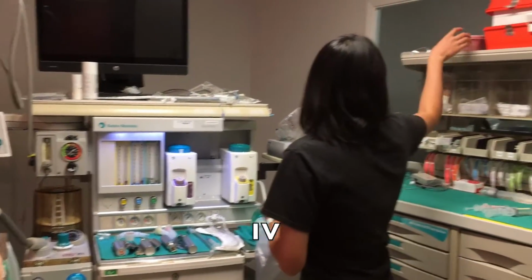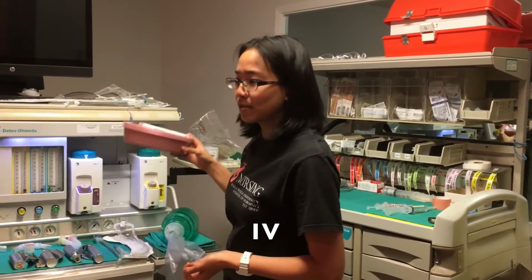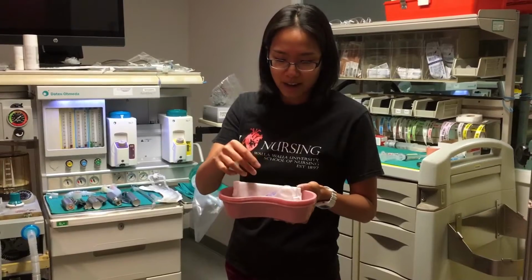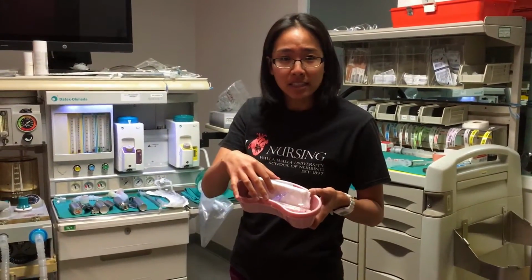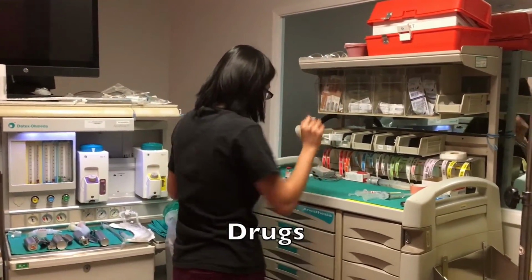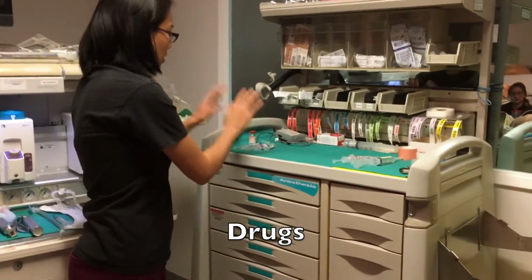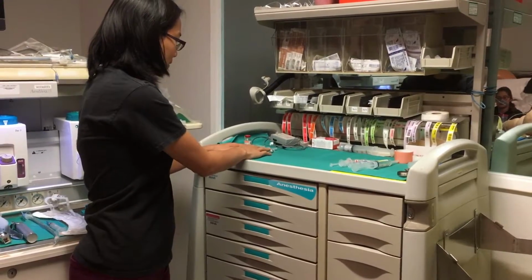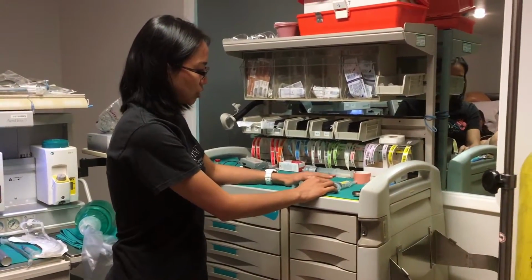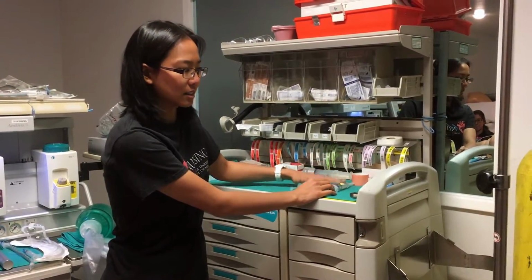I stands for IV. Normally the patient will come in with an IV, but just in case something were to happen, like it gets infiltrated or yanked out, you just want to have a quick IV start kit set up in a basin like this nearby. D stands for drugs. So you want to have emergency drugs over here on the left. I'll talk about that later. And then there'll be drugs that you use for induction over on the right. And again, I will talk about that later.